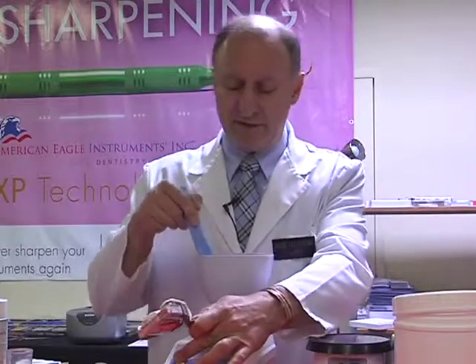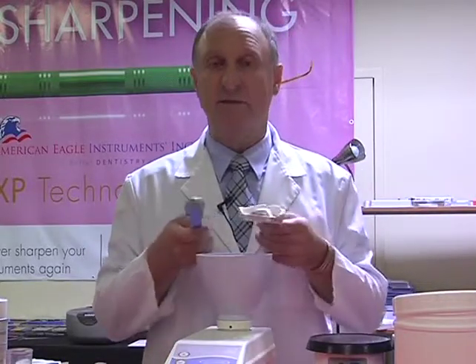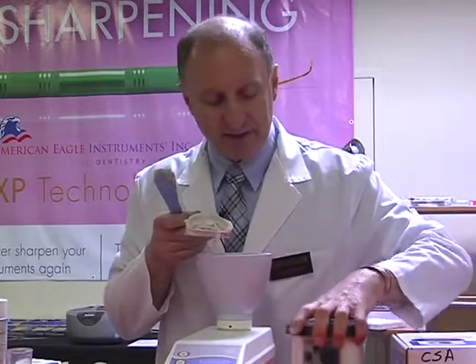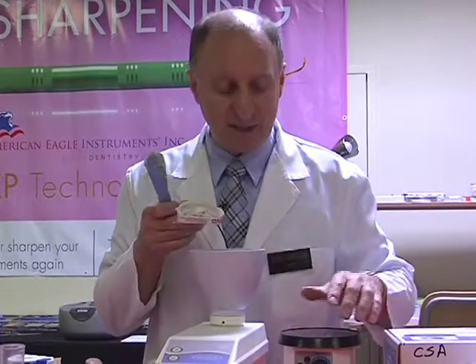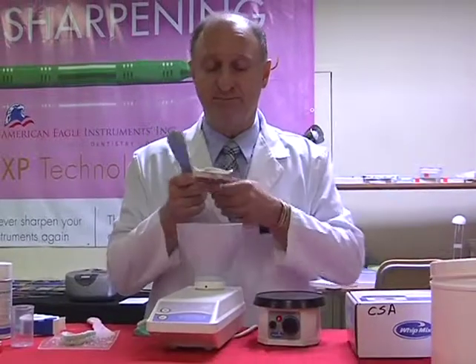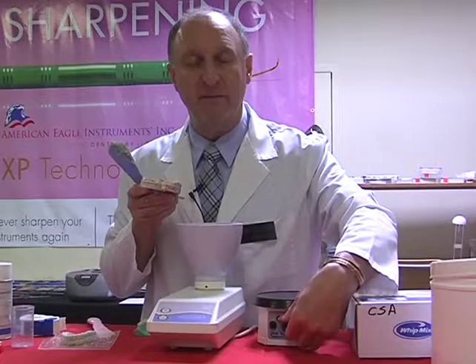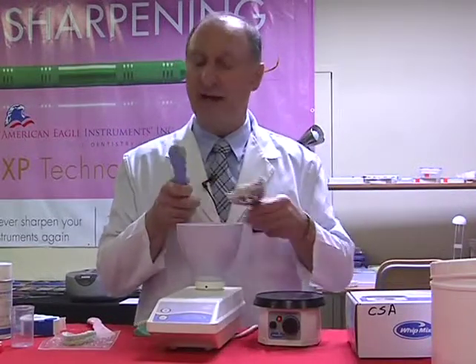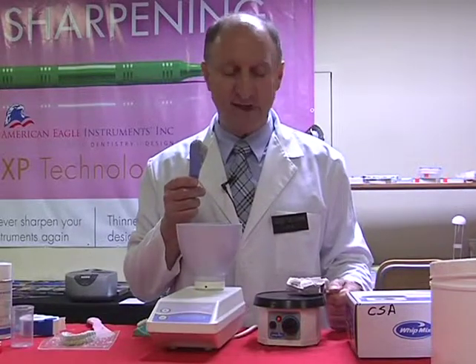So what I'm going to do first off is take a small amount of our stone and start using the dental vibrator. The dental vibrator, in this case I'm using the Whip-Mix general purpose vibrator. It's just around $100. It's very well priced. As I turn on the unit, it has a variable speed over here from low to high. I put it on a medium setting, not high. Hold the tray on the surface of the vibrator lightly.